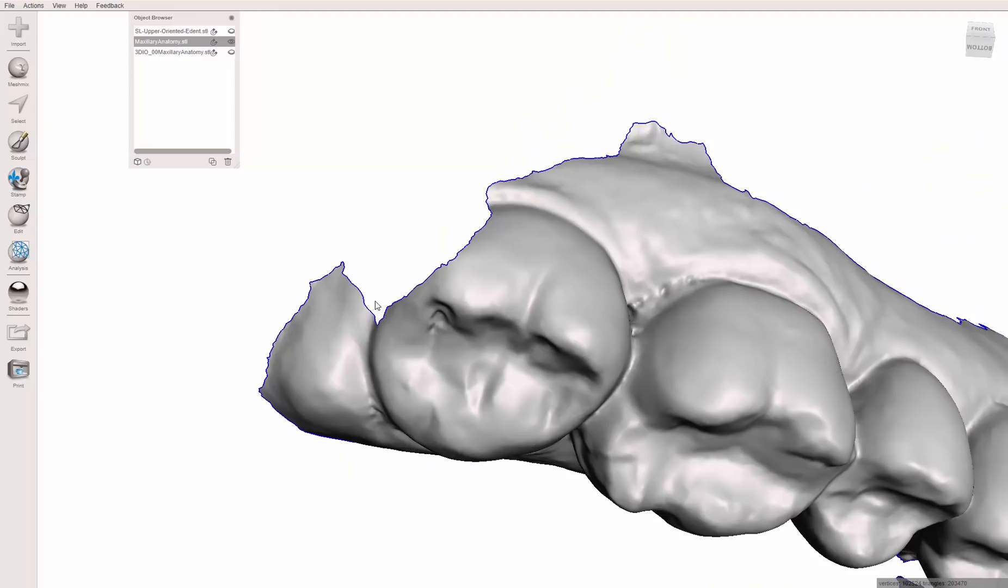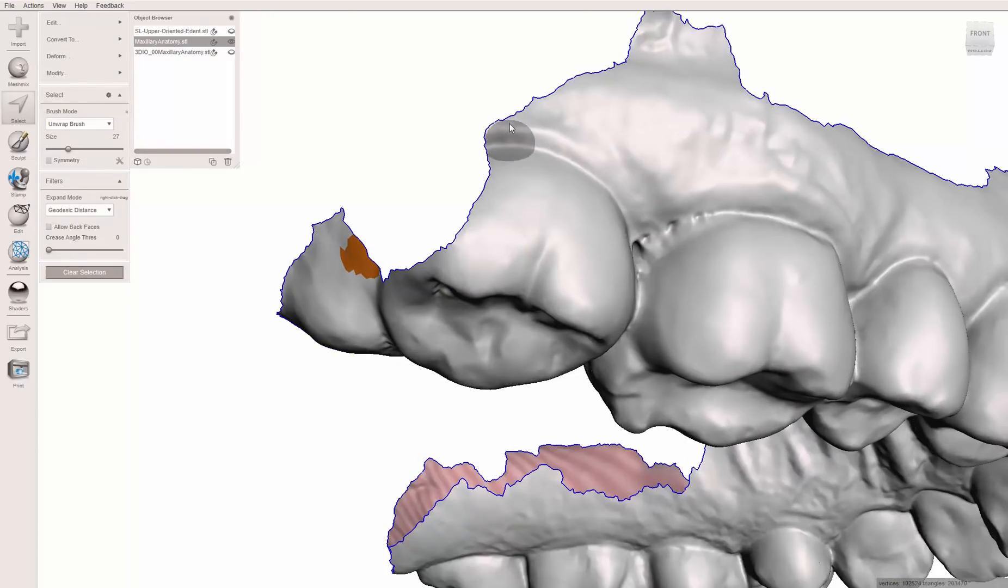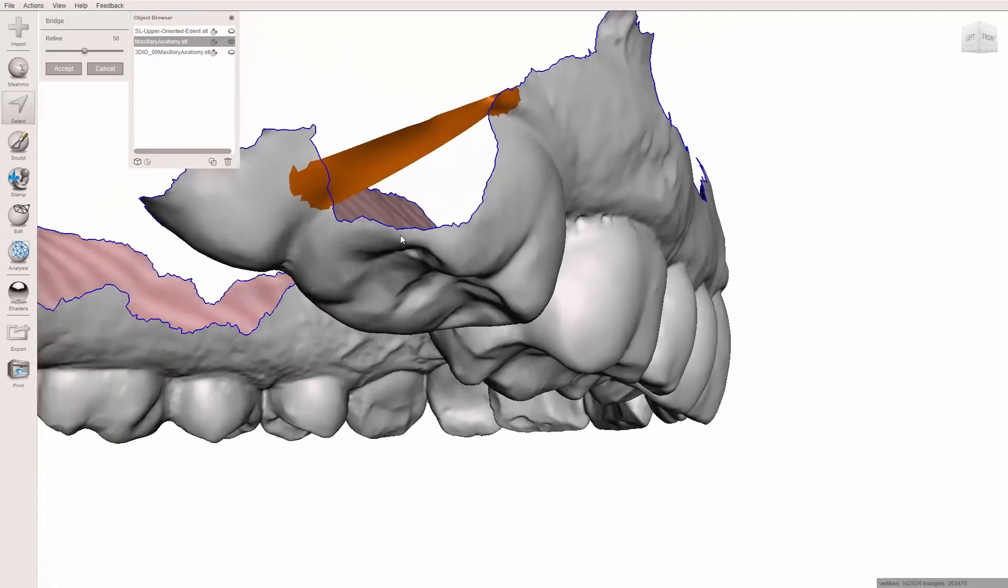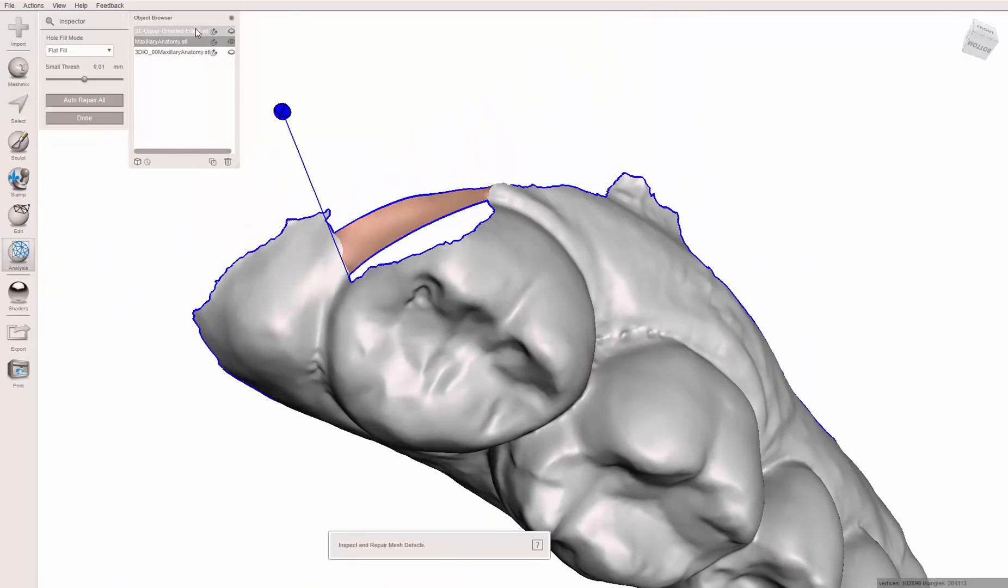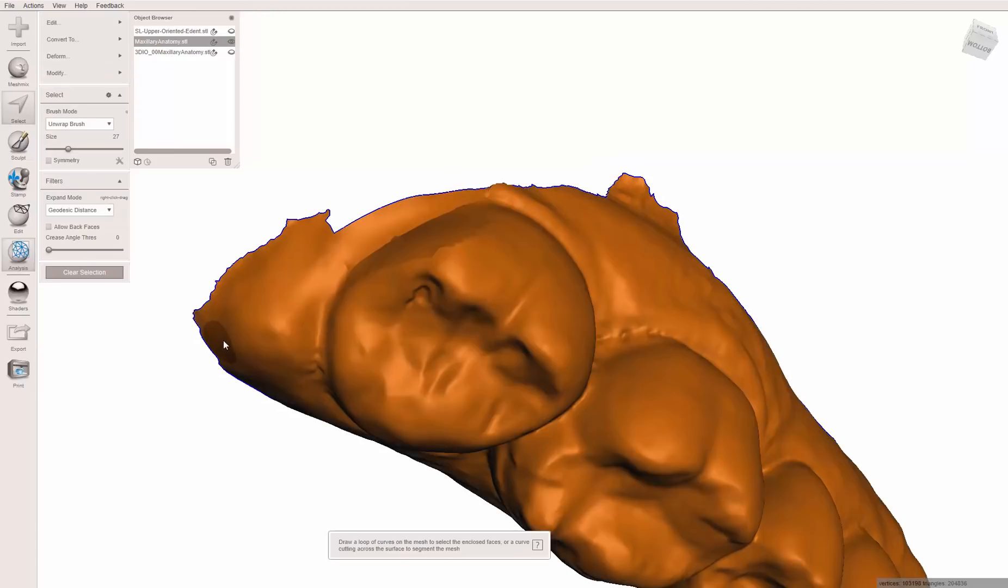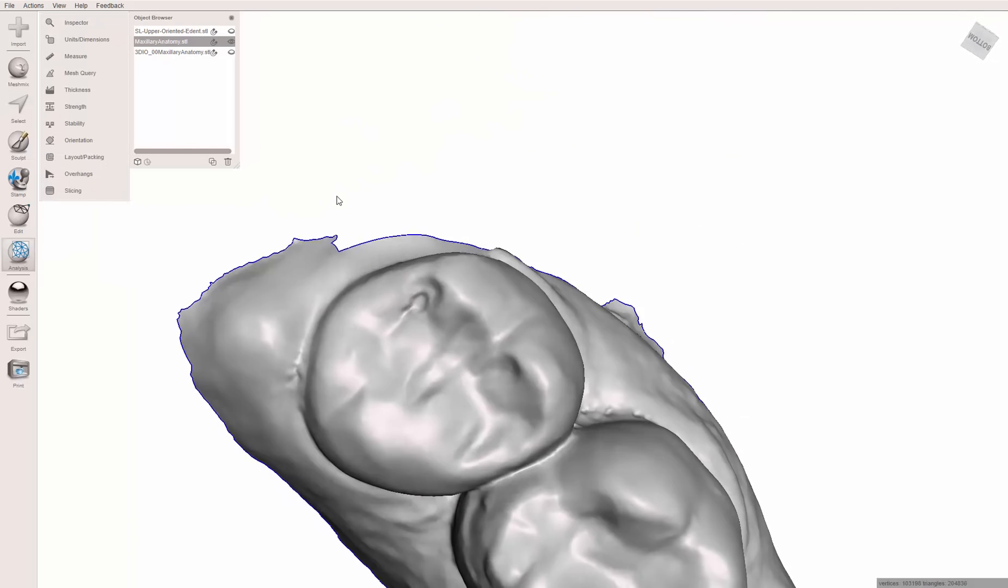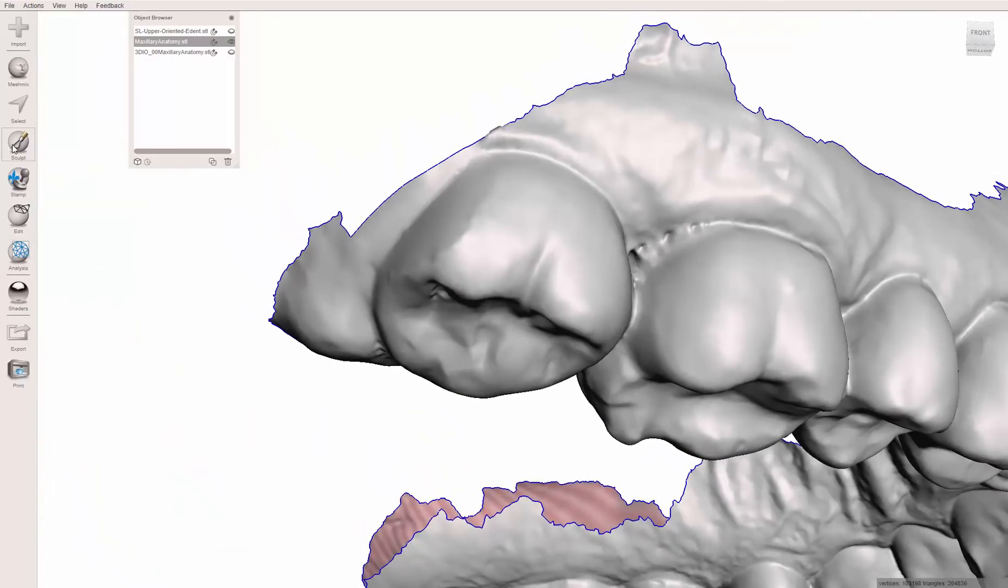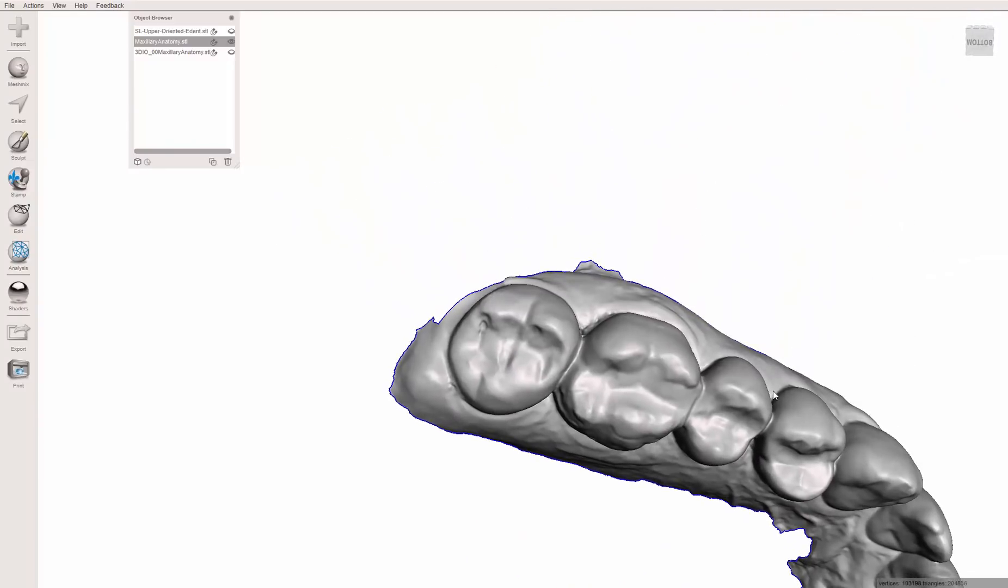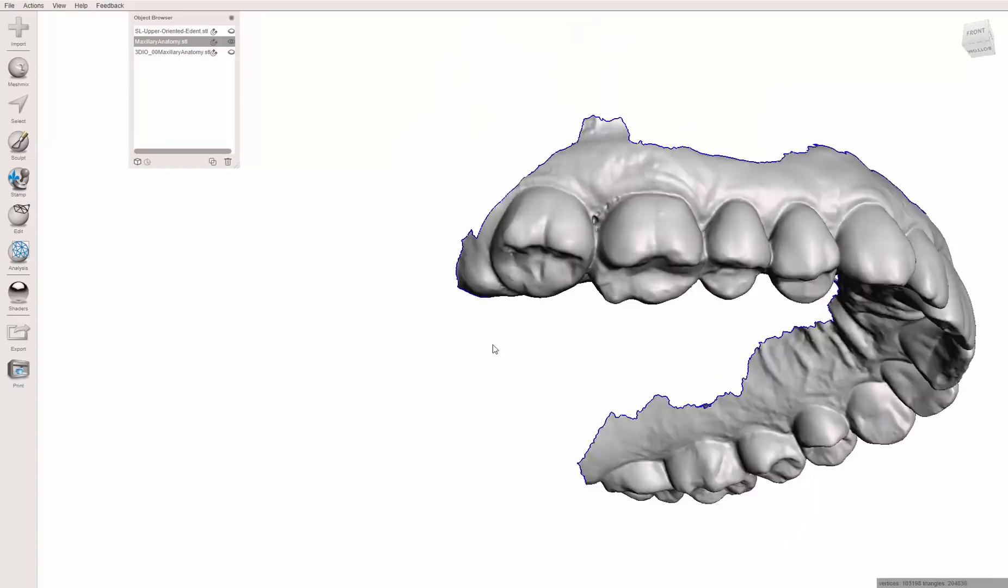So I'm going to do the same thing. I'm going to hit the S button for select. I'm going to select this area. I'm going to select this area. And then I'm going to hit control B. And there's the bridge. Hit accept. Now I'm just going to go down to analysis, inspector, change it to smooth fill. Control shift, or control all, that highlights the whole model. Control shift G will remove those colors. And now you've got the distal of that tooth. I think that's actually pretty accurate. If you don't like that, you could inflate it using the sculpt tools to make it a little bigger, kind of overemphasize it. But I think that's a pretty good depiction. I think that would probably fit on there just fine.